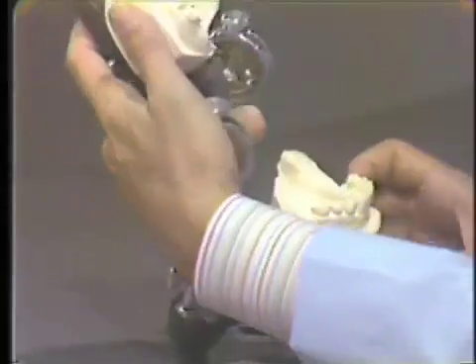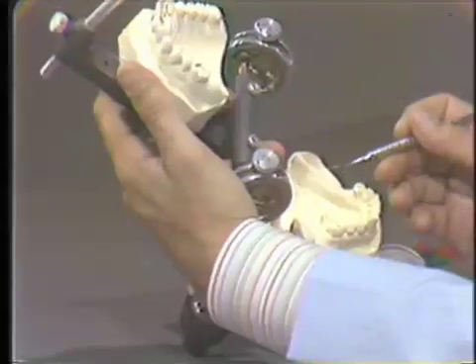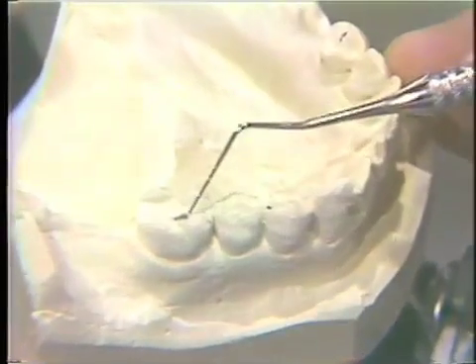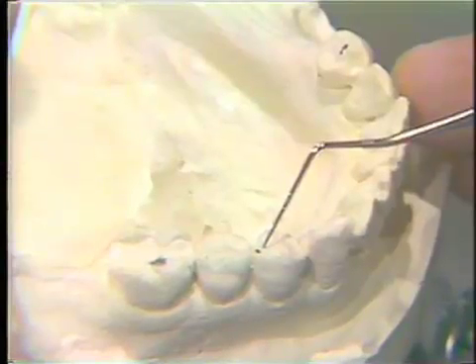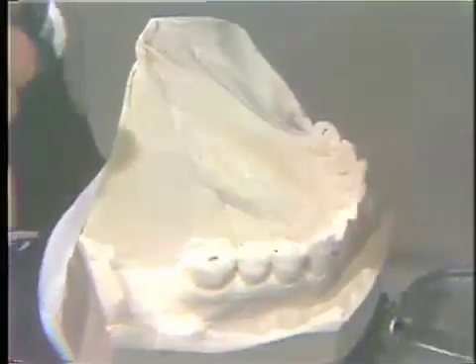We'll examine the cast again on the occlusal surface. We see that this is the first prematurity, but the bicuspid is picked up right afterward in the slide to the centric occlusion position. The same is true on the opposite side — this is probably a mark made going to the centric occlusion position. This should be adjusted out; we should have a stable centric position to restore the patient to.